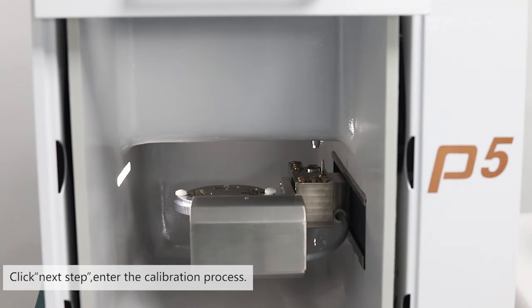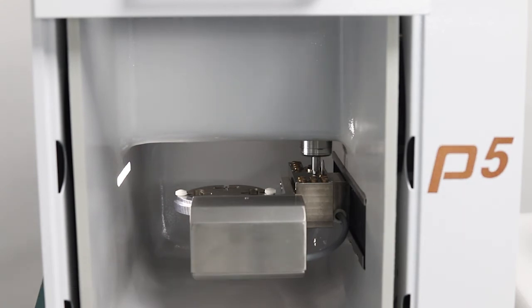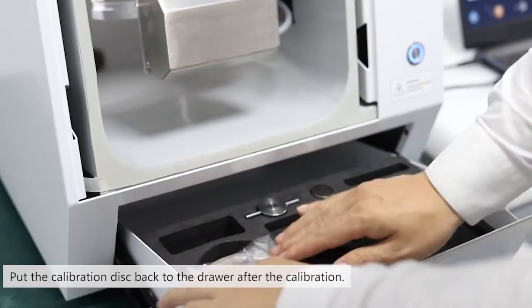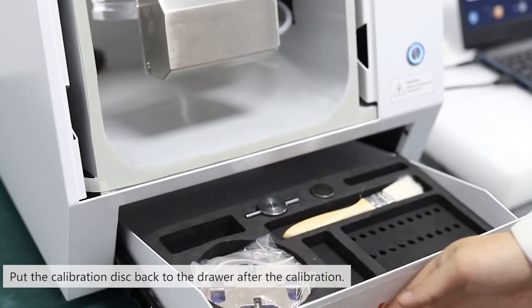Click next step to enter the calibration process. Put the calibration disc back in the drawer after the calibration.